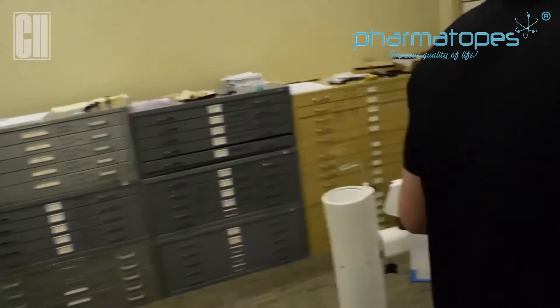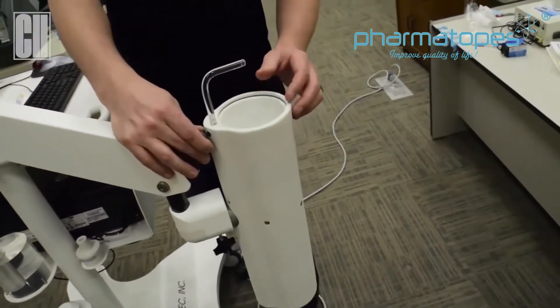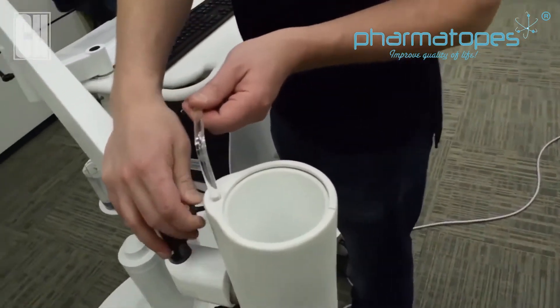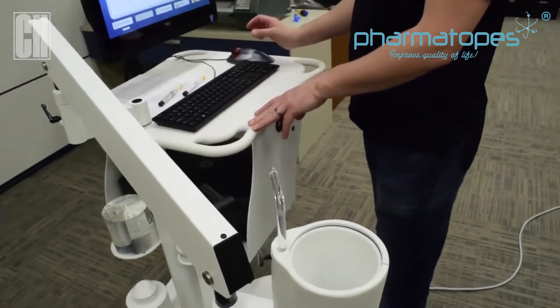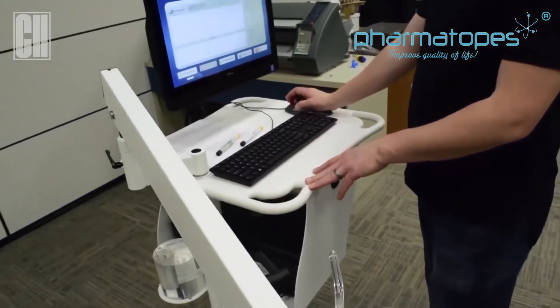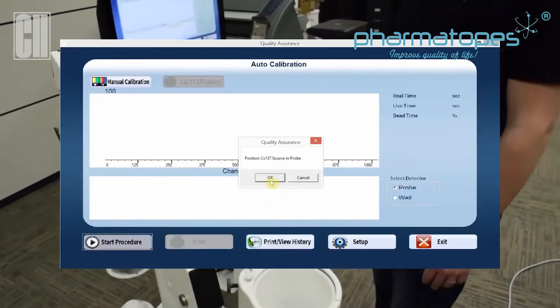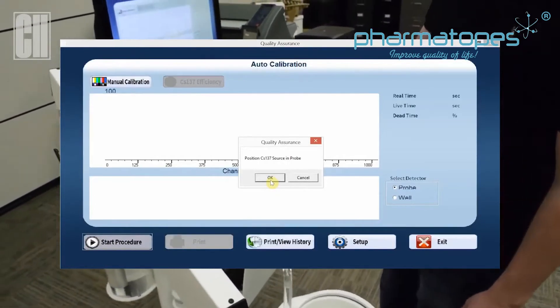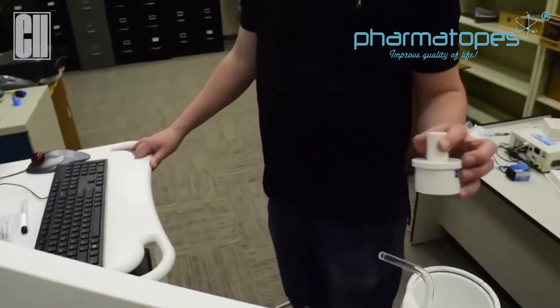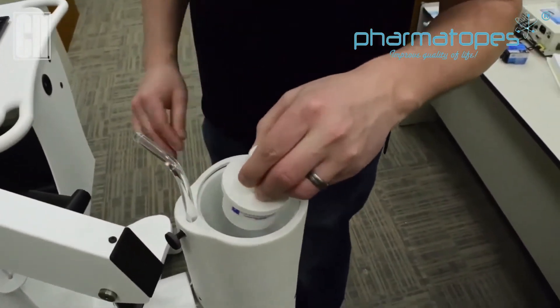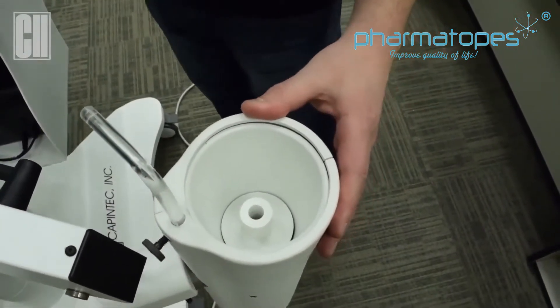We're going to start with the probe. Get the probe into place, then loosen the screw and turn the pointer rod out of the way to begin our calibration. Click on Start Procedure and the software will prompt you through each step. It's telling us to position cesium in the probe. For the probe, you want to get your source holder and place it down into the probe. There's a lip which catches this, preventing it from hitting and causing any damage to the detector.